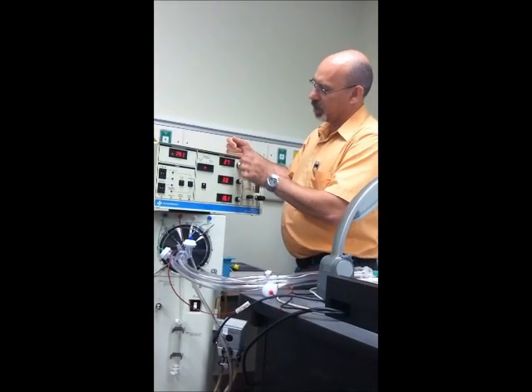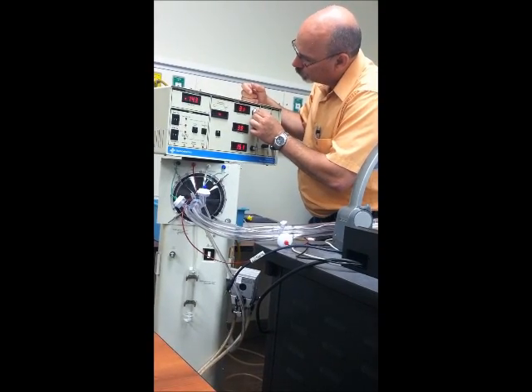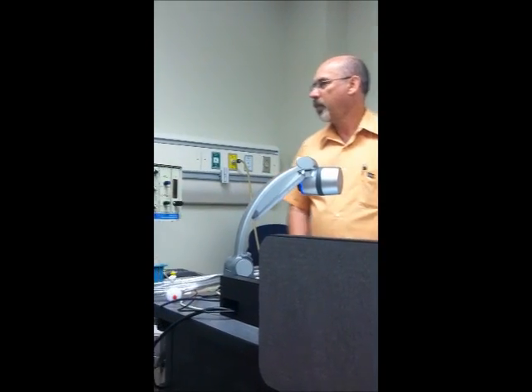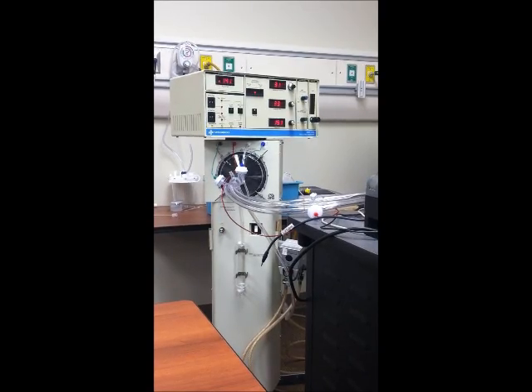Okay, change power to 3.0. Unlock. That's about 3.0 there. My amplitude is creeping up, but I'm just changing the orders to change the power. How's my piston look? Maybe sneaking up on my mean airway pressure a little bit. So, that looks pretty good.